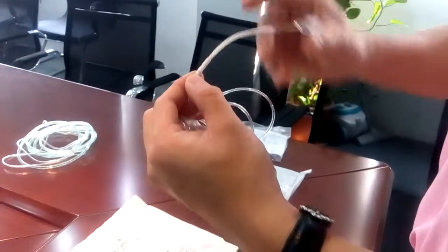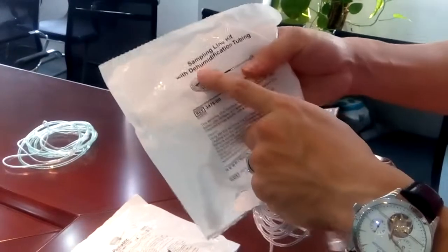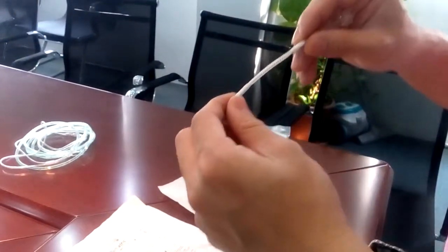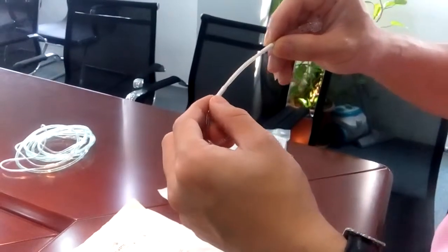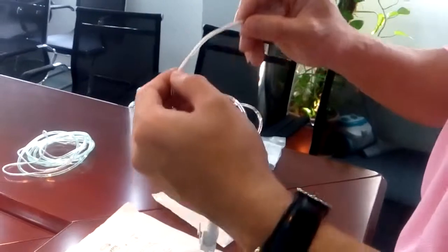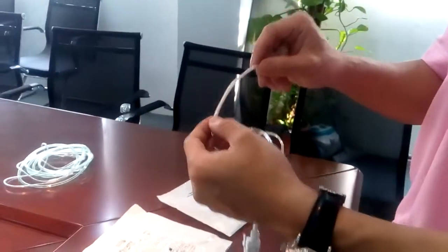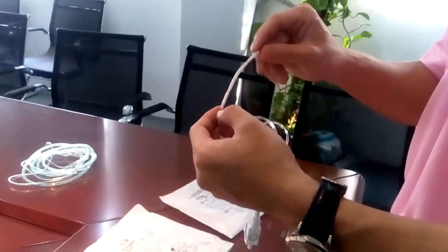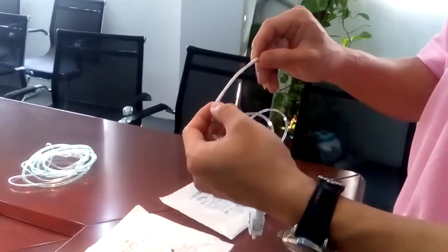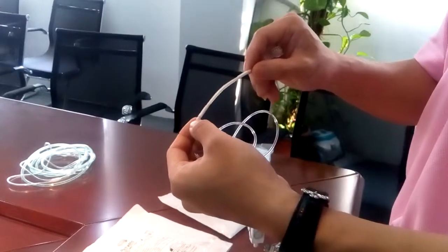This is actually the dehumidification tube. This tubing can absorb water. It is good for 120 hours of monitoring — 120 hours of monitoring for smaller procedures. Probably you can do around 30 small procedures with it.